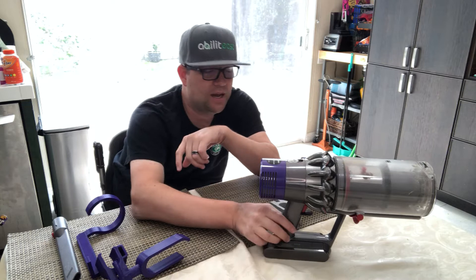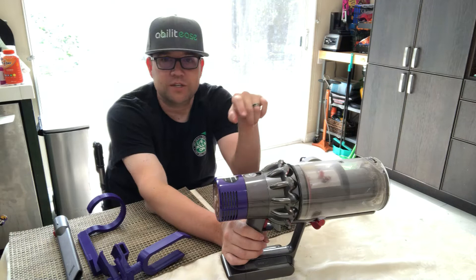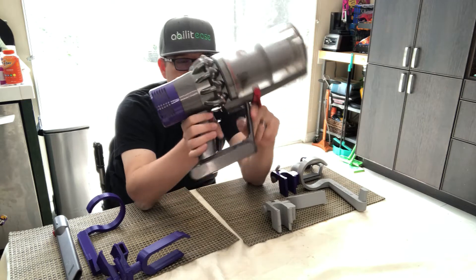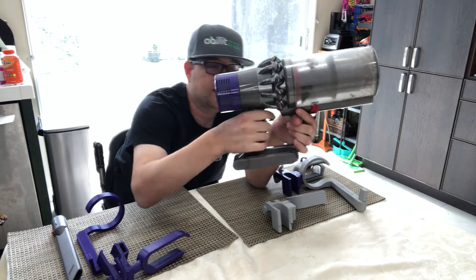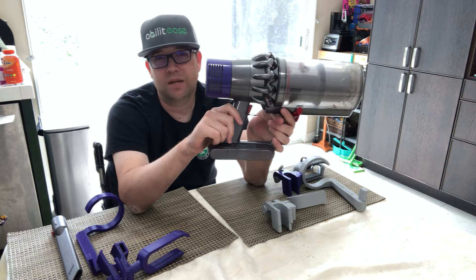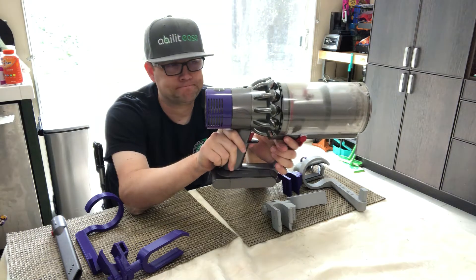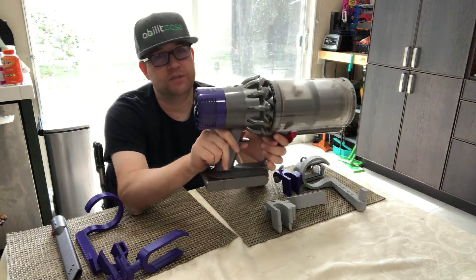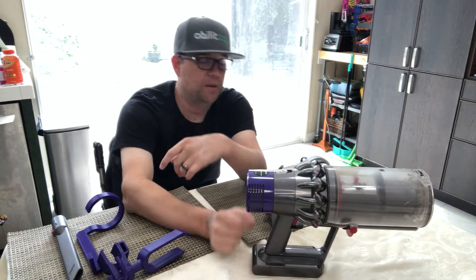The one thing I disliked about this unit was the fact that it had a trigger. With other vacuums you could flip on a switch and keep it running, but with this unit you actually have to engage the trigger. If I'm going to push my chair and try to hold the trigger at the same time, that's problematic. For a while I didn't want to use this unit, even as nice and efficient as it is.